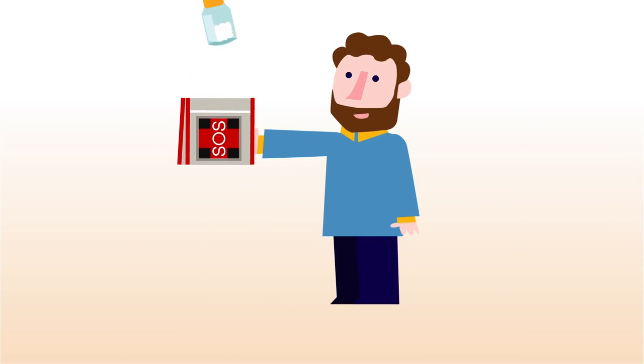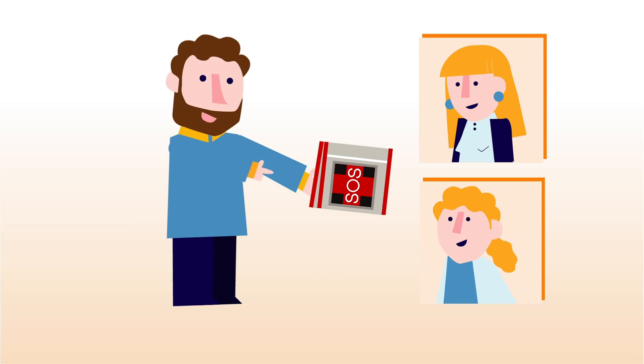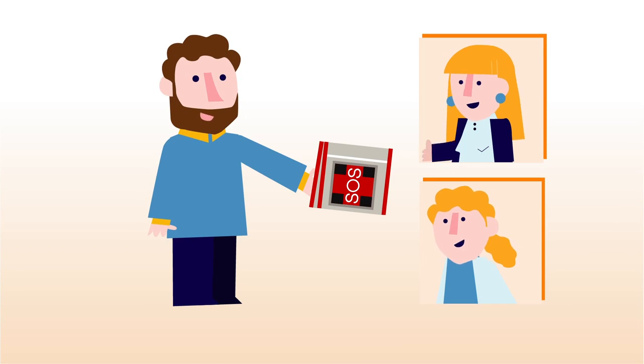Finally, make sure you take your emergency injection kit with you wherever you go. And discuss it with your friends, family and GP so they all know about your condition and how they can help you.